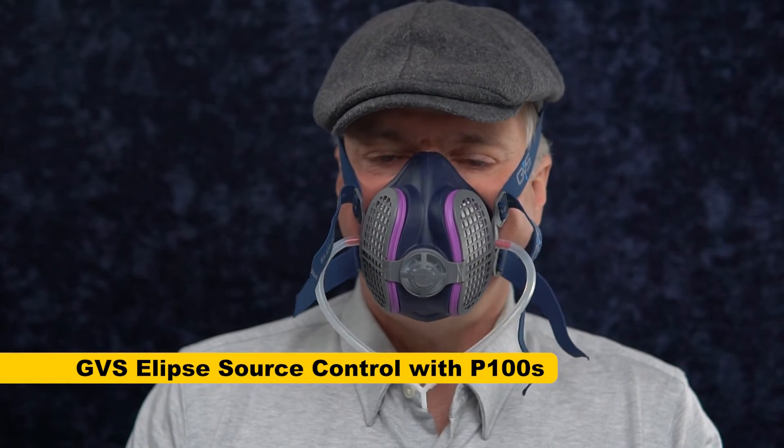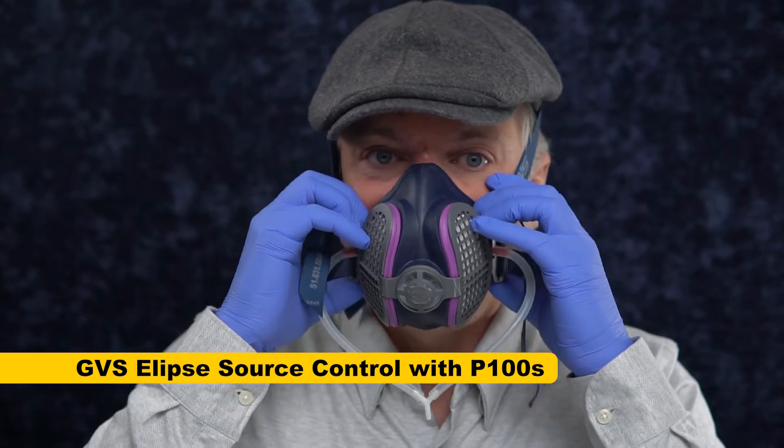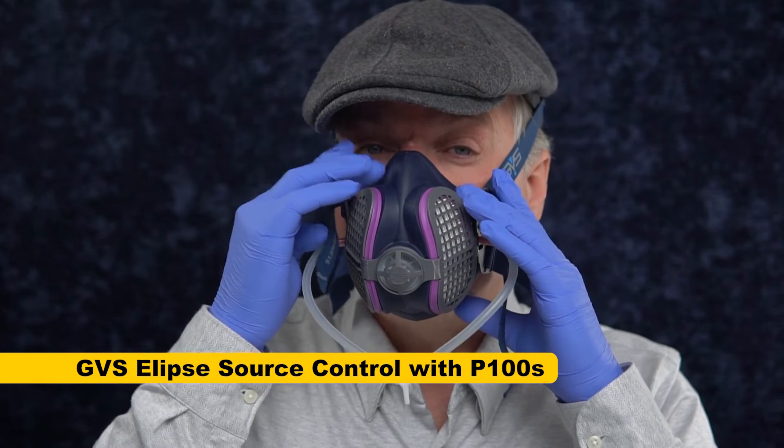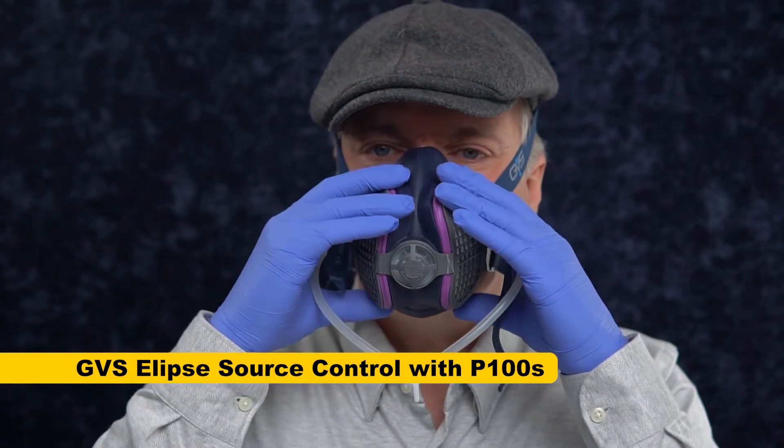I am back and I've got smooth skin. I do have a beard, but I've shaved it so that it's smooth underneath — just cheating. My fit testing in the past shows that I've been able to get a good fit with that. Maybe that's a problem with the GVS — we'll have to test that. Right now we're going to test if this smooth skin that makes all other masks fit fine works with the GVS. Well, it definitely feels better. It's still a narrow mask and it kind of forces itself forward away from my chin because it's too narrow, but I'm definitely feeling a better seal.